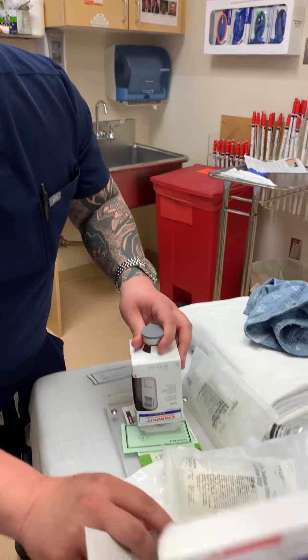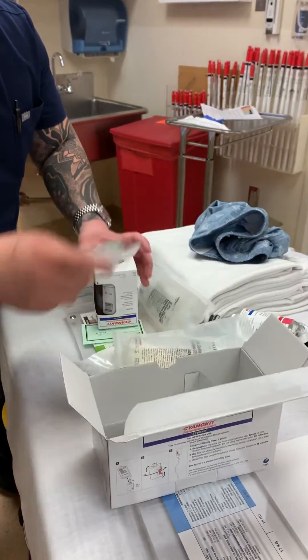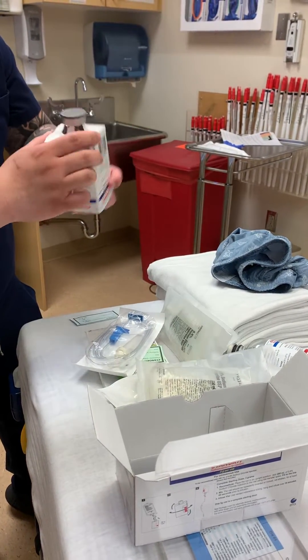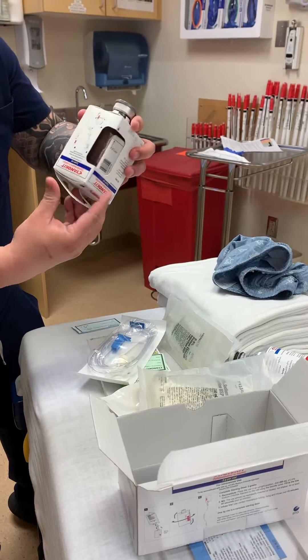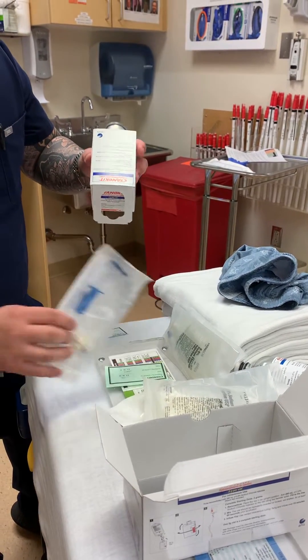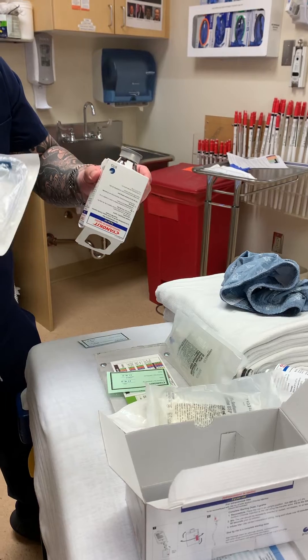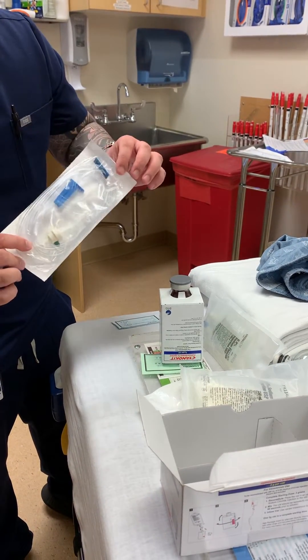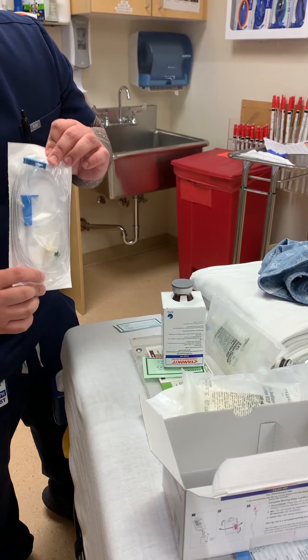After filling, you'll want to gently rock or invert it for at least 60 seconds. You do not want to shake it. Once it's all diluted, you'll use the provided tubing for adults, and it'll just run by gravity for 15 minutes.